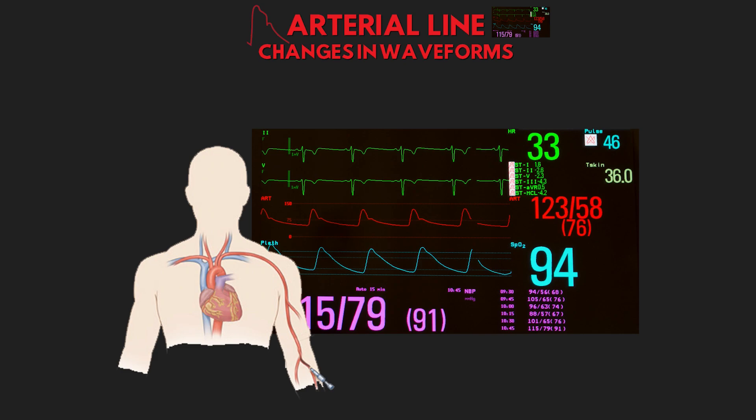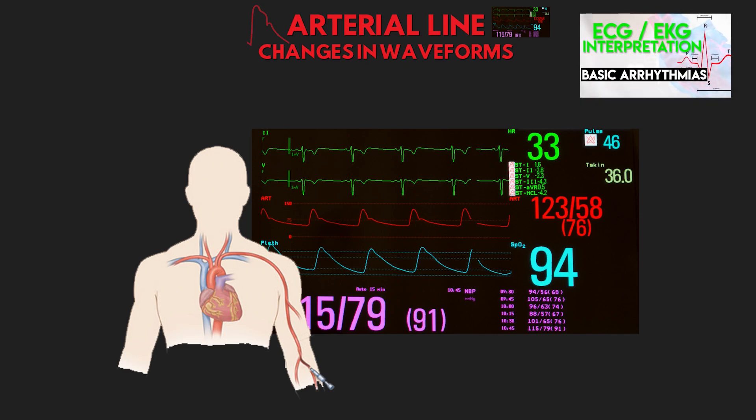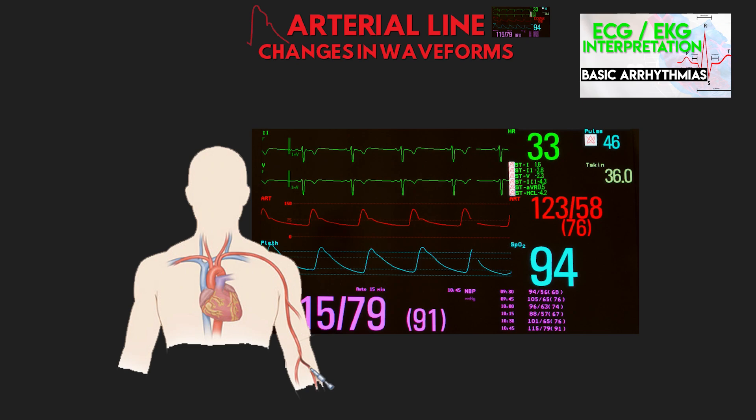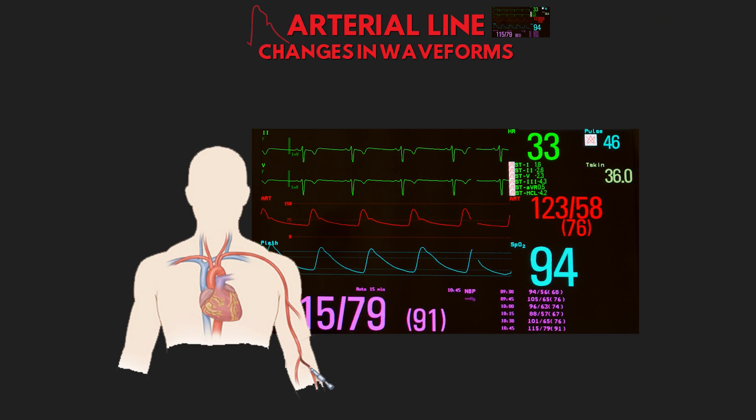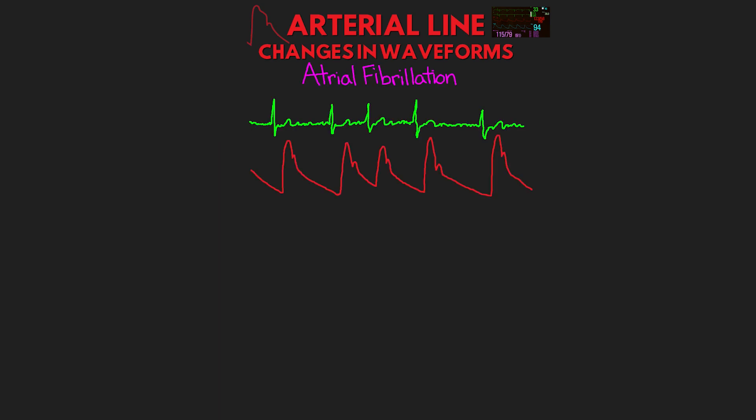The first group of changes that we're most often going to see are going to have to do with different arrhythmias that our patients have. I will link to a playlist of lessons reviewing the arrhythmias up above, but changes in the way the heart is beating will manifest as changes in our arterial line waveforms. The first arrhythmia I want to talk about is atrial fibrillation.